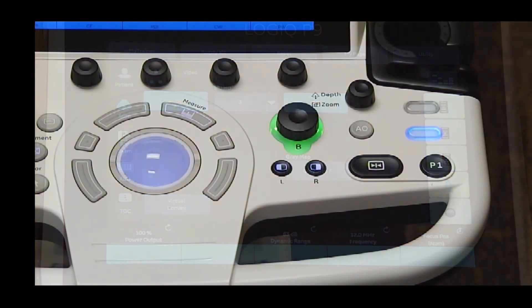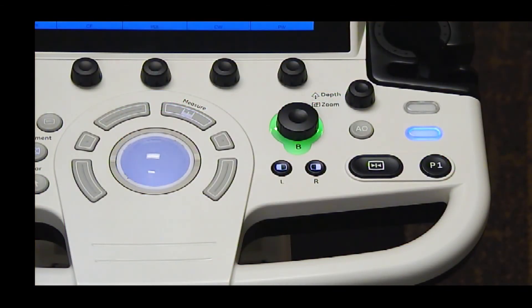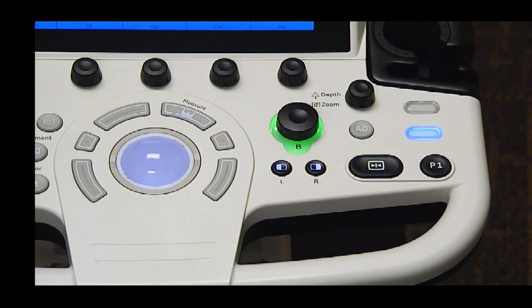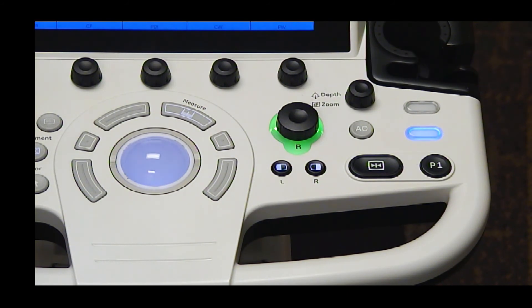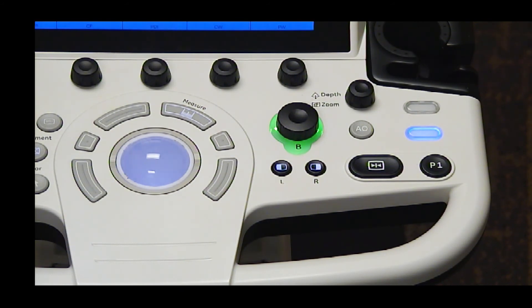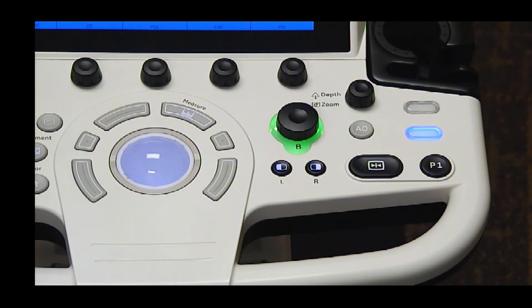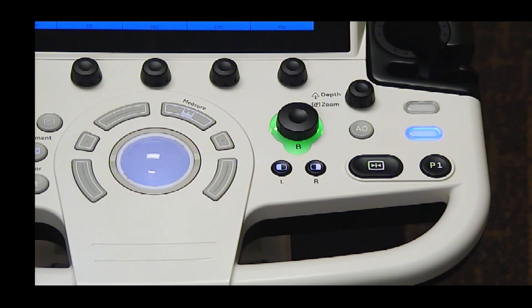Auto-optimization, or AO, is a feature on the operator panel that automatically improves the image whether you are in B-mode or pulse wave. While in B-mode, contrast resolution will be improved.